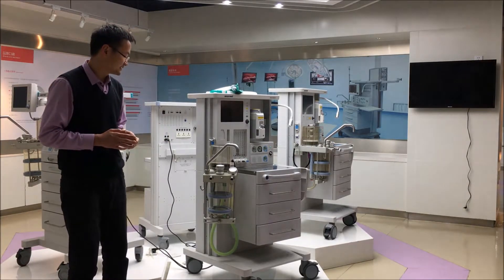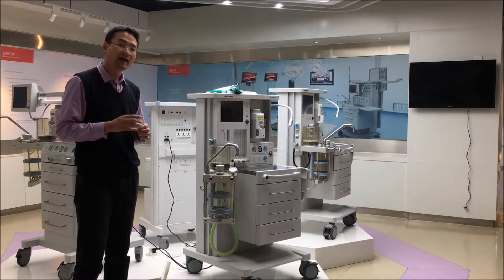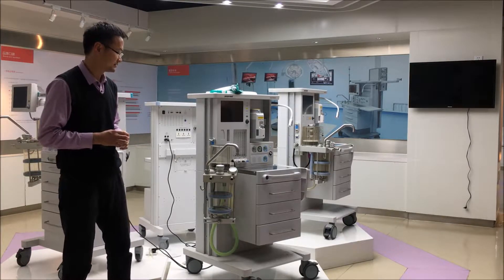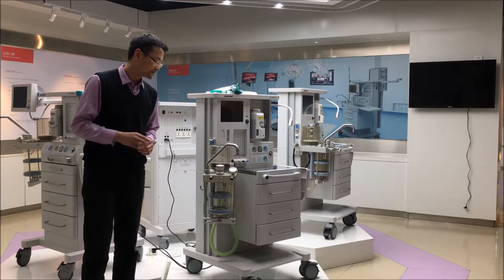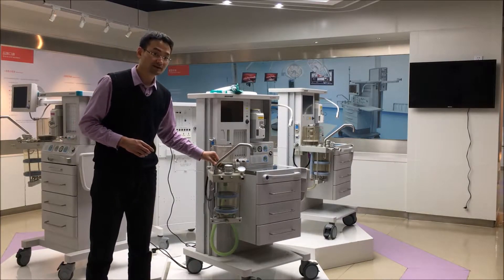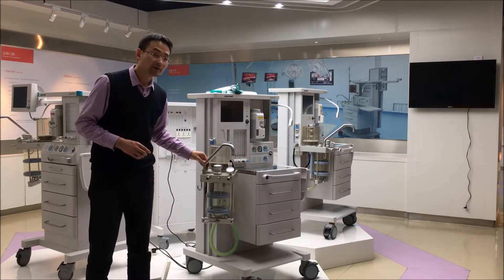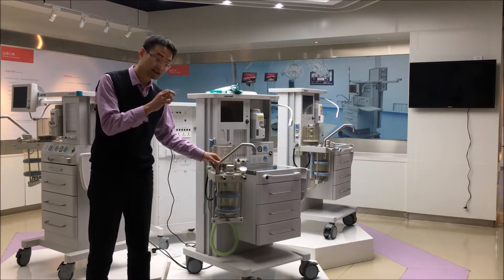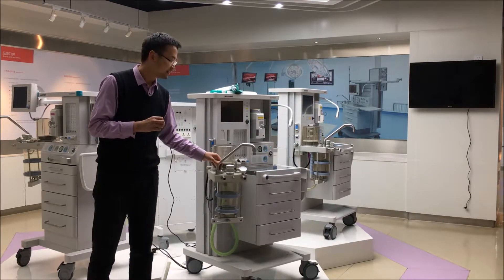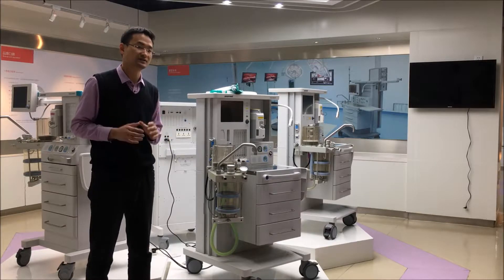Our breathing system has very good quality and design. Let me tell you several points. The first point: we have a movable design. This movable design allows for small space adjustment, which gives great convenience in operation.